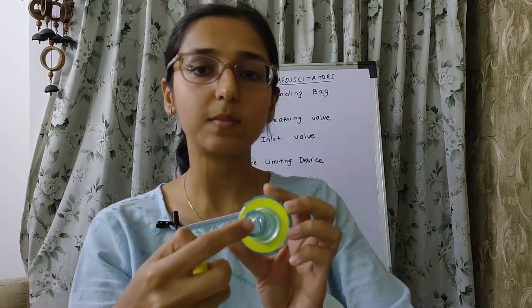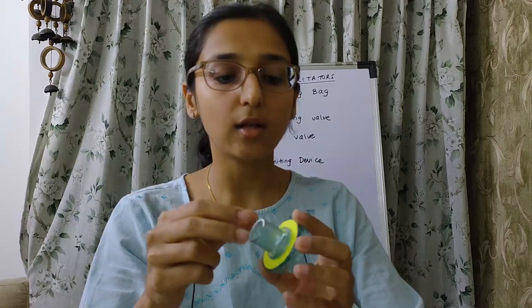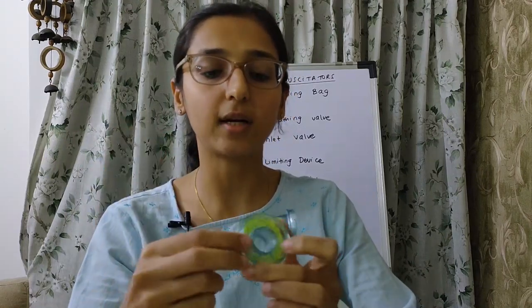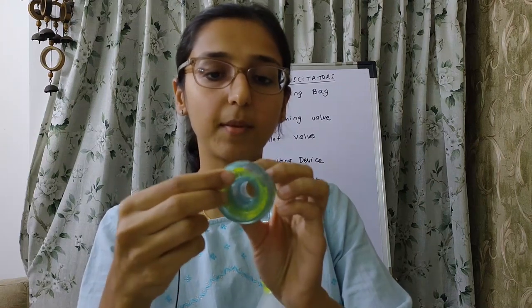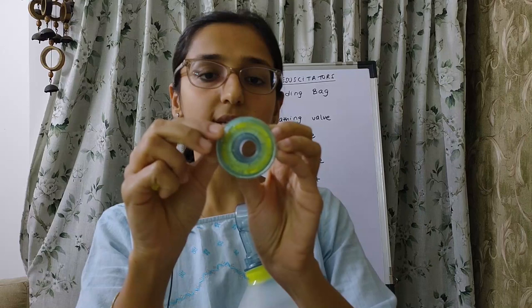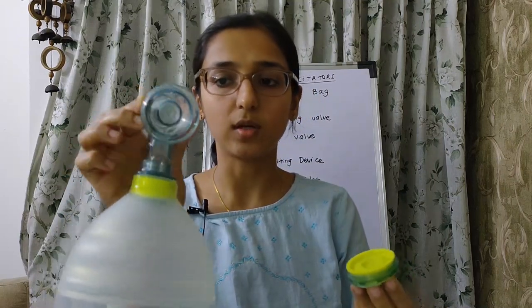There is an inspiratory port and an expiratory port, because these valves allow only one-way flow of gas. The disc membrane sits on the expiratory port. If I lift the disc membrane, you can see the expiratory port, which is sealed by the disc membrane.